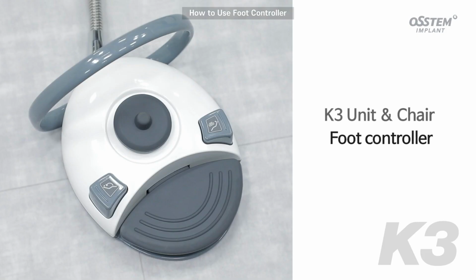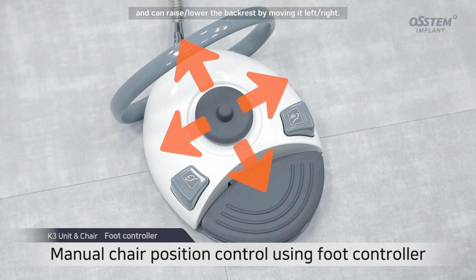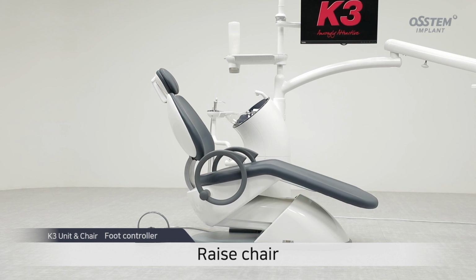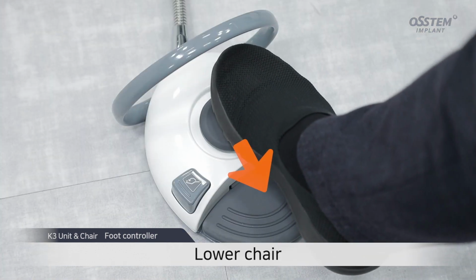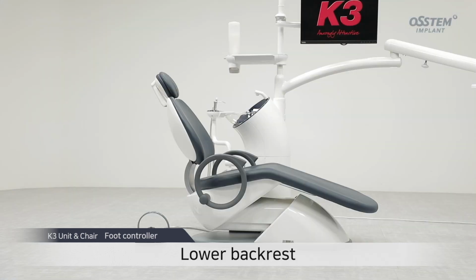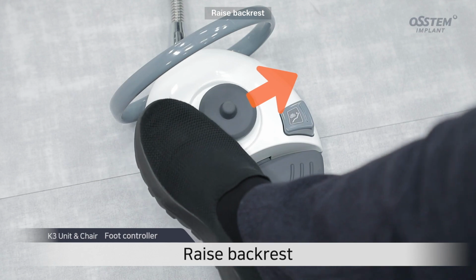How to use the foot controller. You can manually raise and lower the chair by maneuvering the joystick up and down, and can raise and lower the backrest by moving it left and right. Raise chair. Lower chair. Lower backrest. Raise backrest.